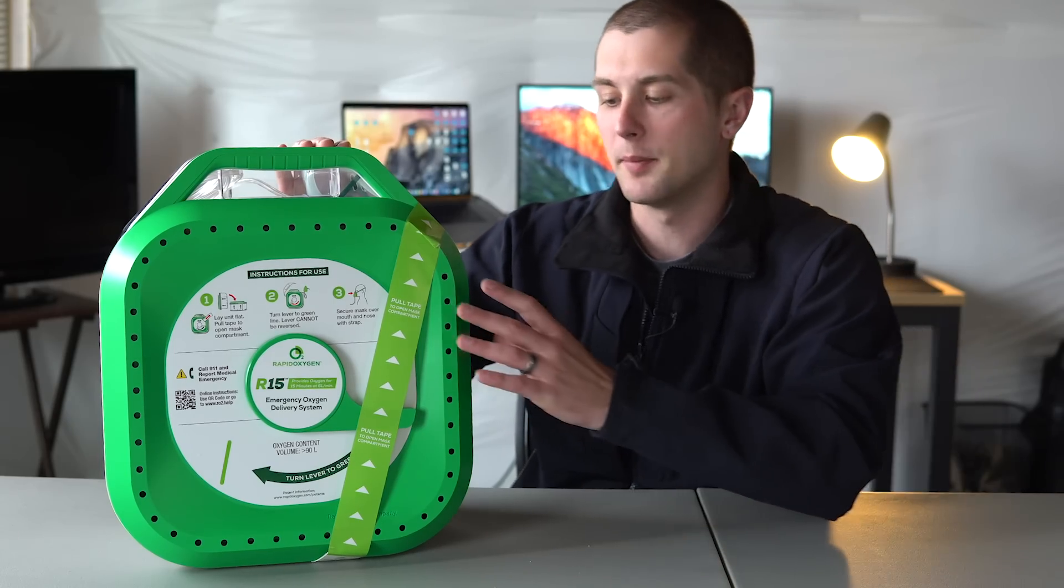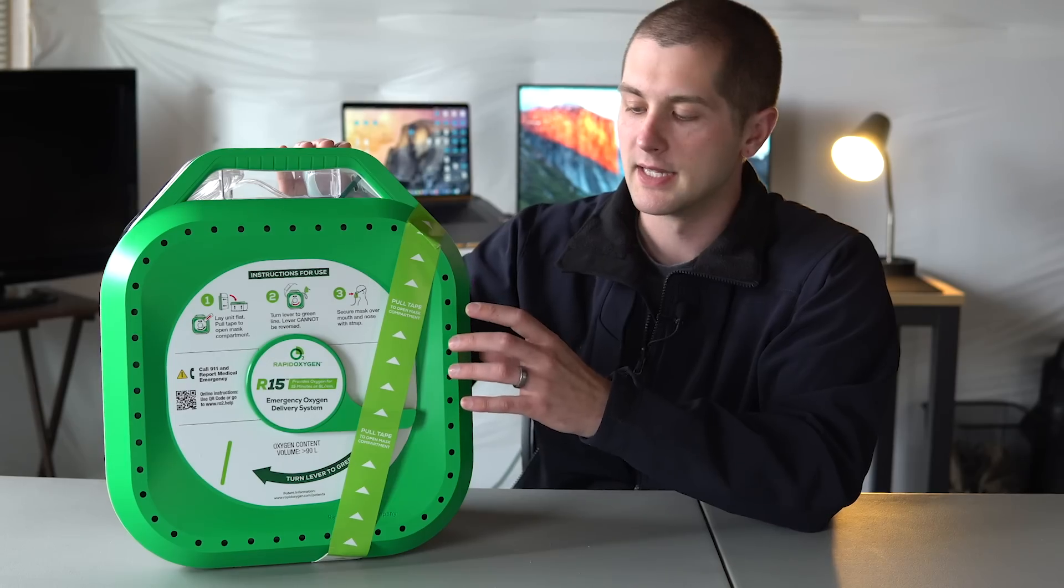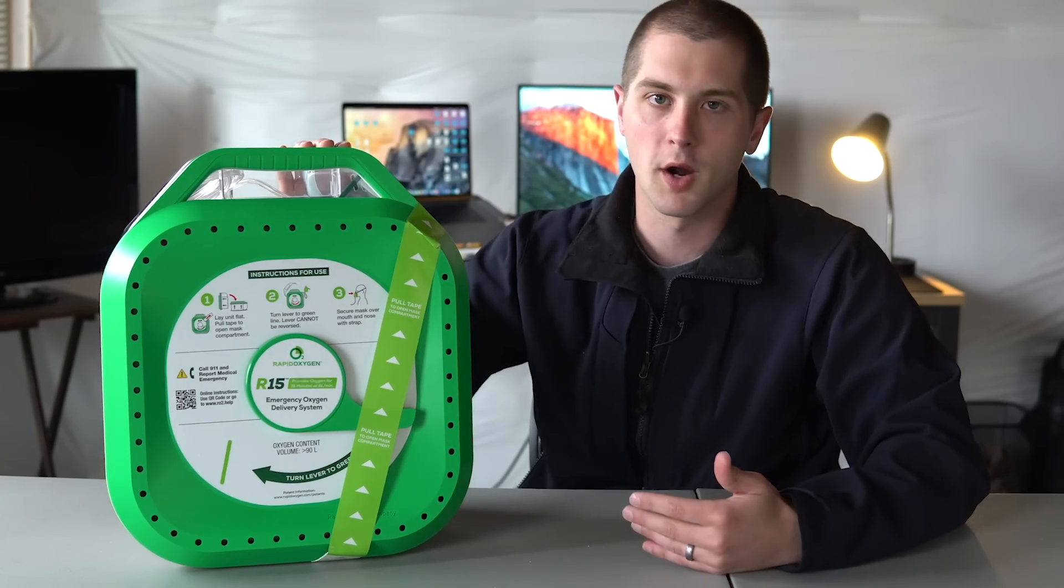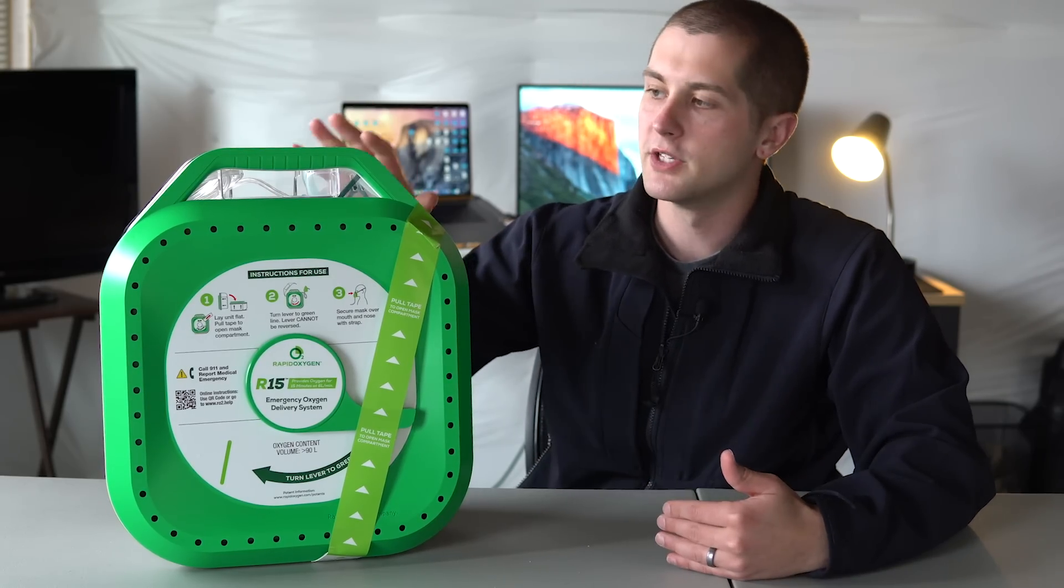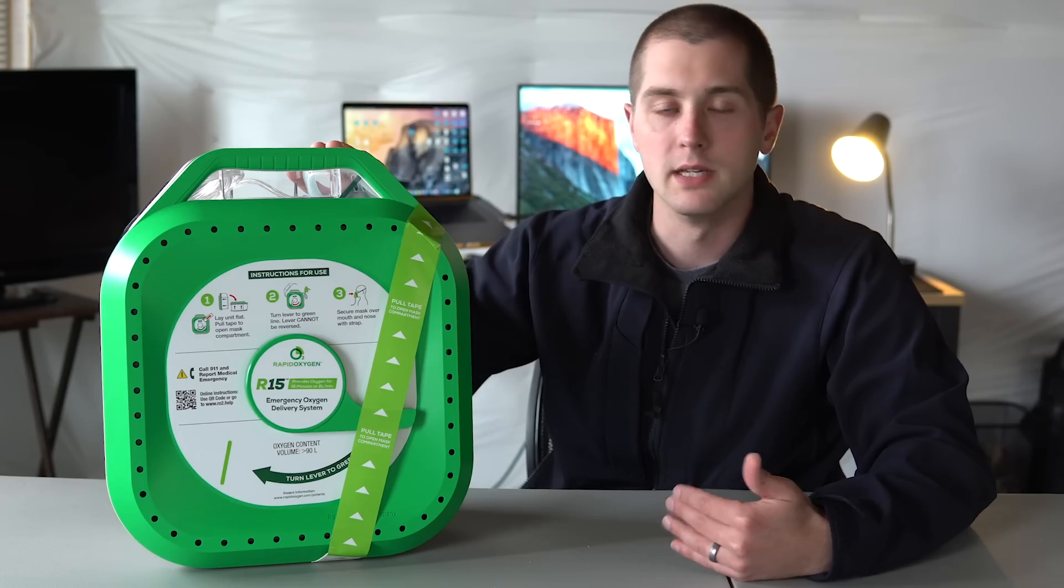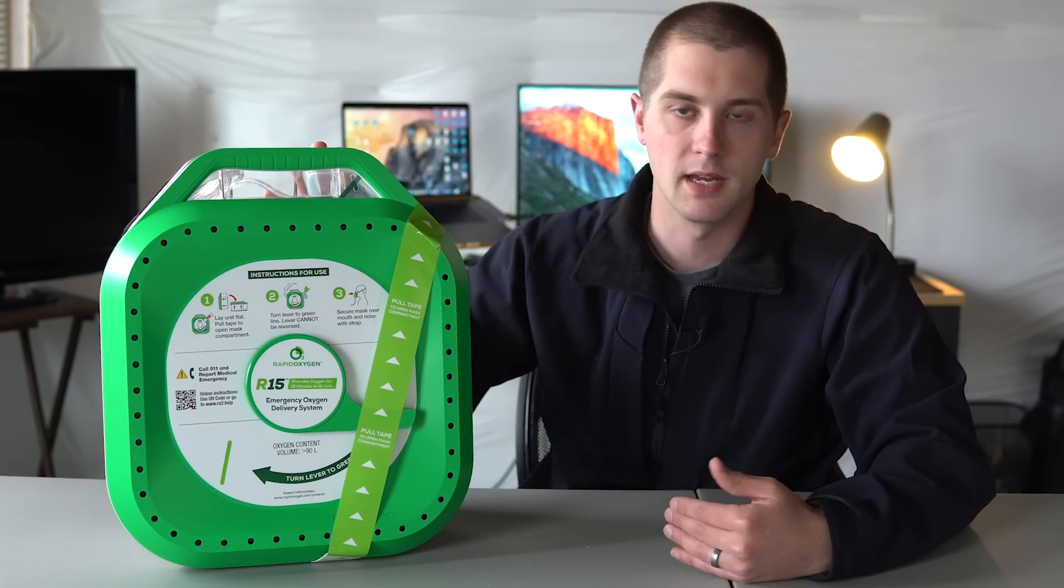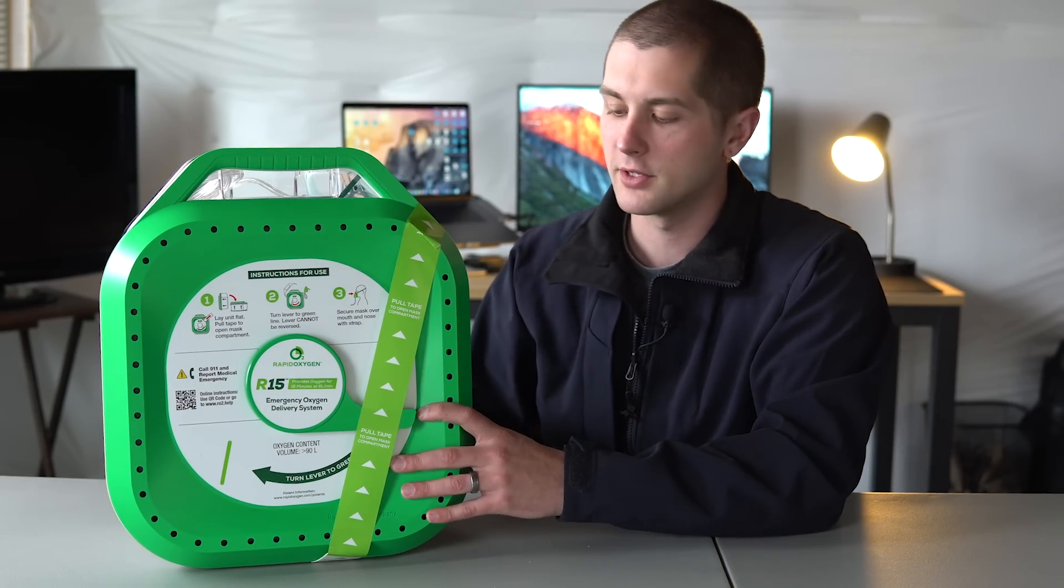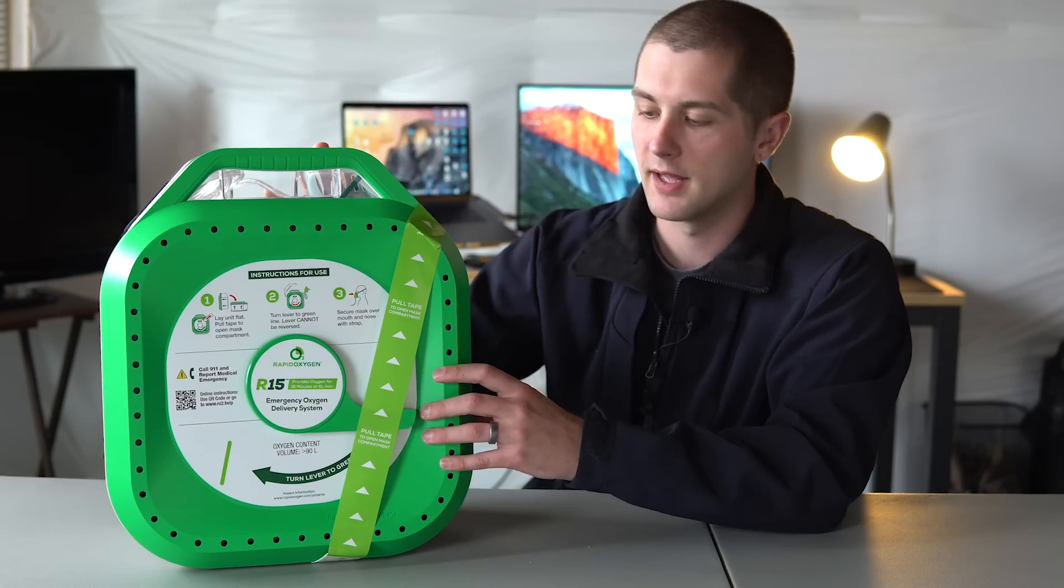Another bonus of this not being a pressurized tank or requiring batteries or anything like that is that you can store this anywhere. So there are a lot of OSHA requirements for where you can store pressurized cylinders. They can't be in large areas. And with this, you can mount this on the wall next to an AED in an office building, and it would be completely OSHA compliant and completely safe. Like I just said, this does not require any batteries or anything like that to go in here. So you don't have a risk of this not being charged when you go to use it or anything like that.